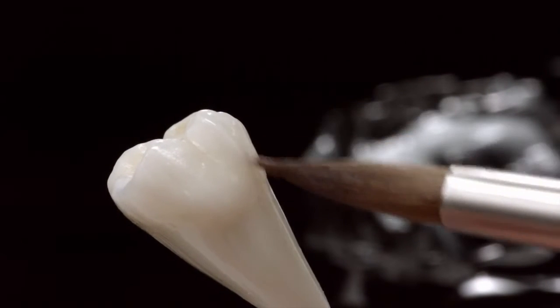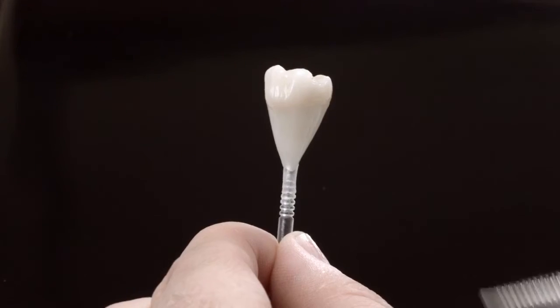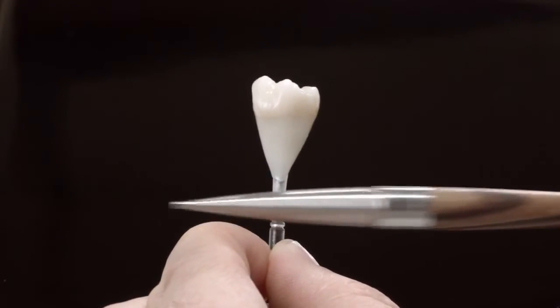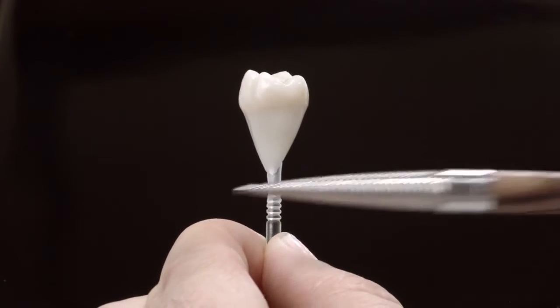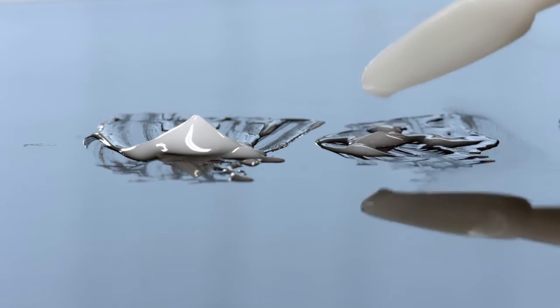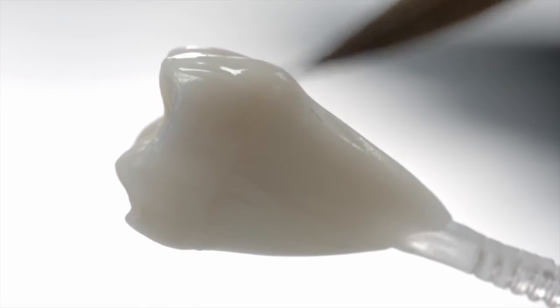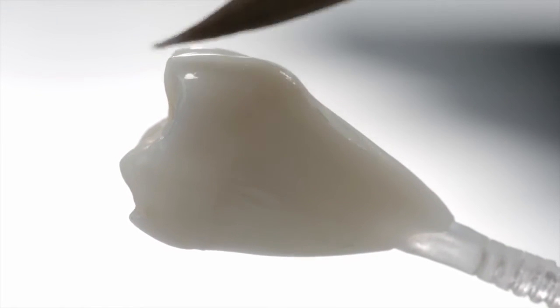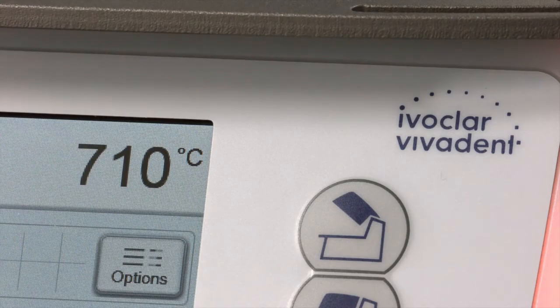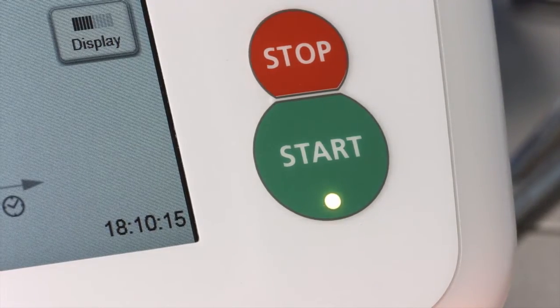The thixotropic behavior of the glaze paste enables the application of superficial textures. If these are not desired, the glaze can be tapped smooth after application, creating an evenly smooth surface. If you want a less glossy surface, dilute the glaze paste more and apply a thinner layer. Make sure that you do not dilute the mixed consistency any further with a moist brush. All monolithic restorations can be fired at only 710 degrees Celsius. For the relevant firing times, please see the instructions for use.